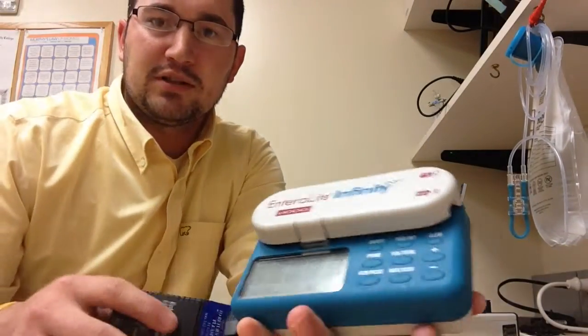Today I'm going to be showing you how to PM a Moog Infinity infusion pump for feeding. This is what the pump looks like.